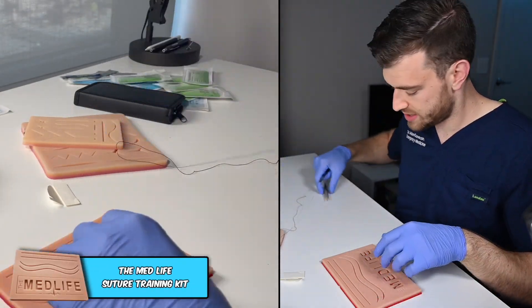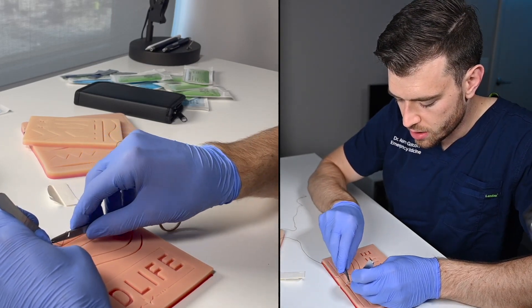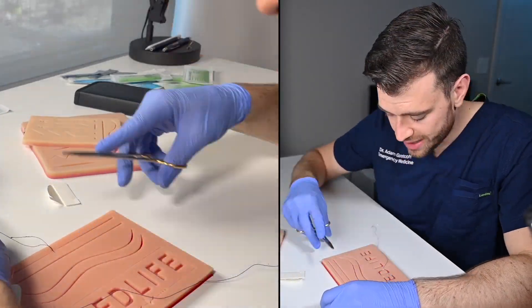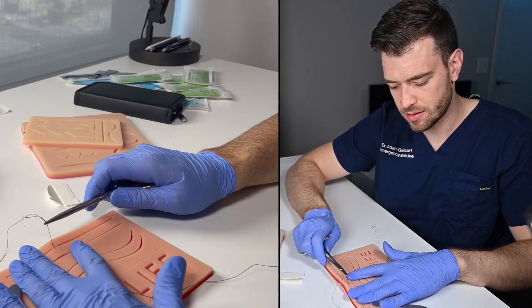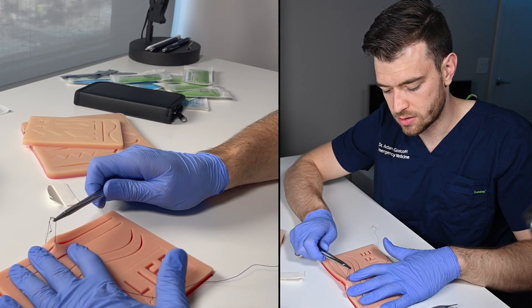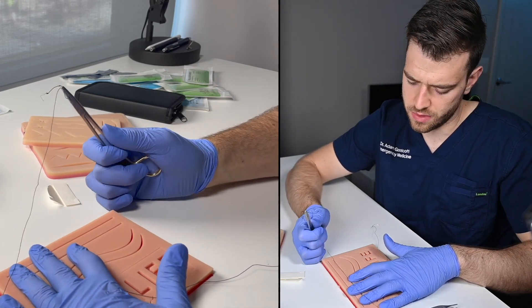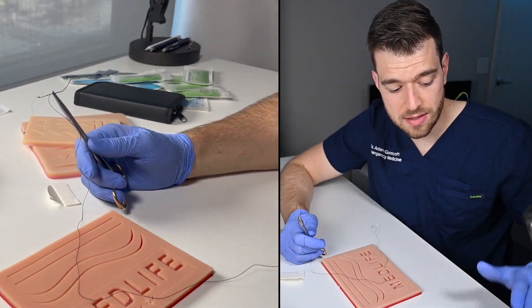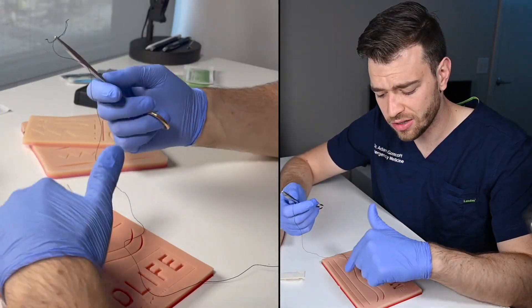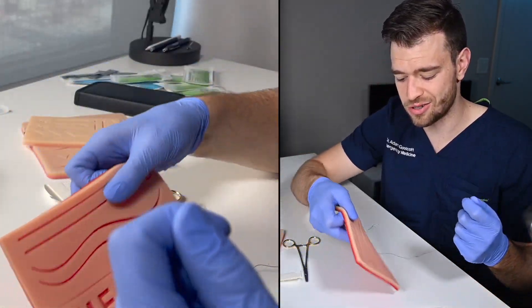We're going to use the same suture and put the same simple interrupted stitch in the second pad. We've got it clamped — it can lift the suture pad no problem; passes that test. That's holding pretty well, but definitely holds less than the first. The mesh in the first pad here holds a lot more tension — probably double. This held nicely; you could definitely put tension in for a suture, but if you're looking for ultimate hold, our suture pad is actually not the pad for you.